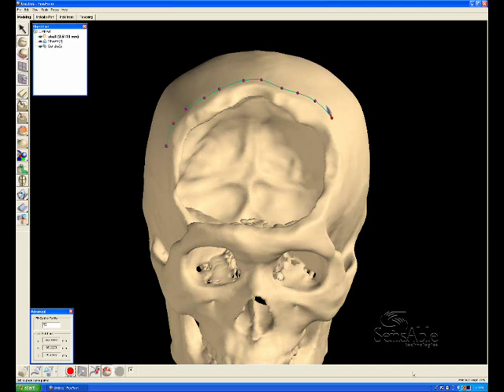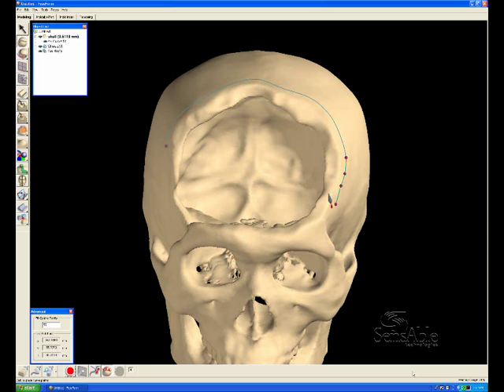Once virtual clay, the model—in this case the scanned skull—can be felt with the Phantom desktop device.